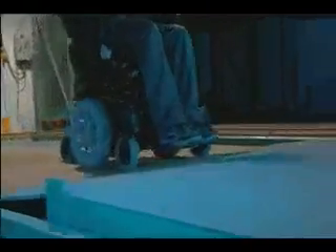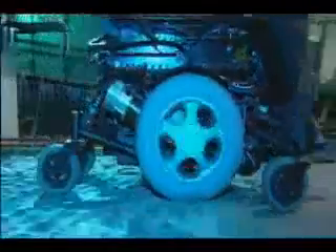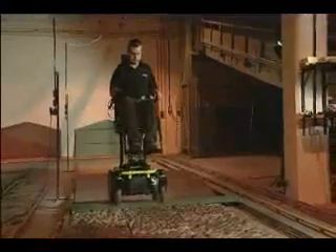The six-form suspension can be seen in action over this cobbled surface. The six wheels move independently, giving the user a balanced and stable ride. This can even be achieved when in creep mode speed at a full 12-inch lift position.